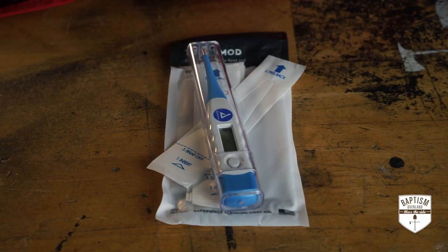We have tools and devices. Let's open this and see what we've got. Thermometer — this would be the peel pack. So you put on the sleeve before using the thermometer.